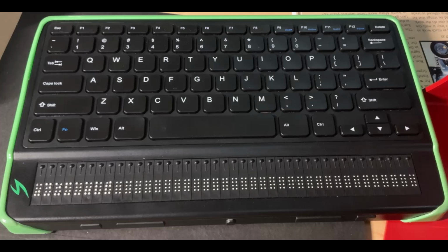This particular updated version will deal with how to switch your language profile in version of the Mantis 2.6 or above. The reason we're doing this is because some of our videos are a couple of versions behind and there have been some significant changes, and I wanted to have a very brief video about how to change that. So let's go ahead and get started.